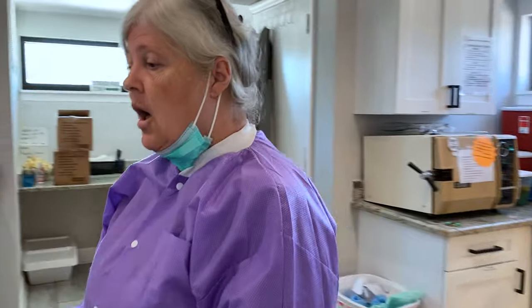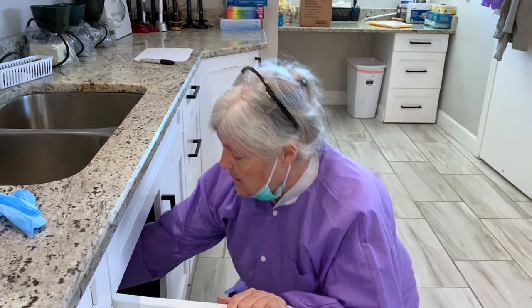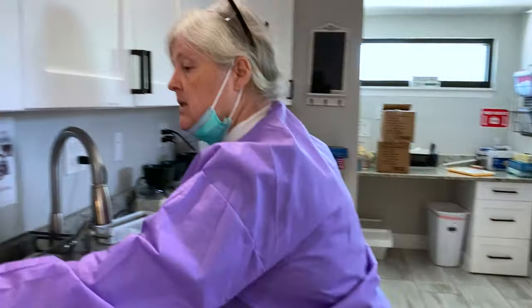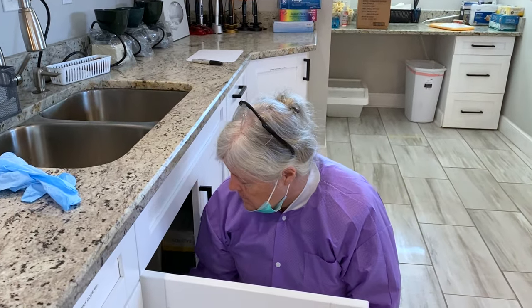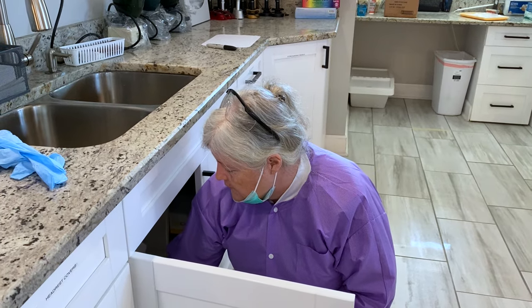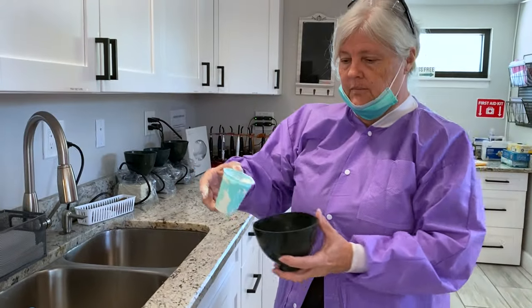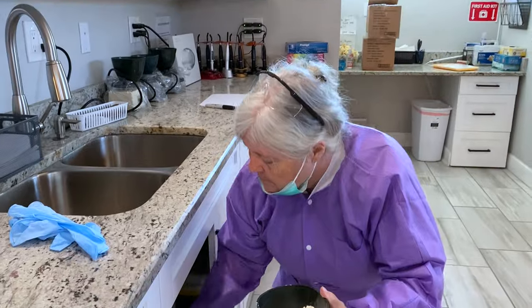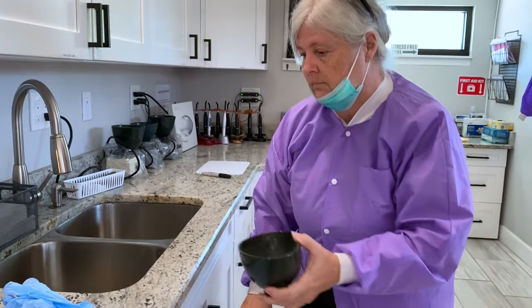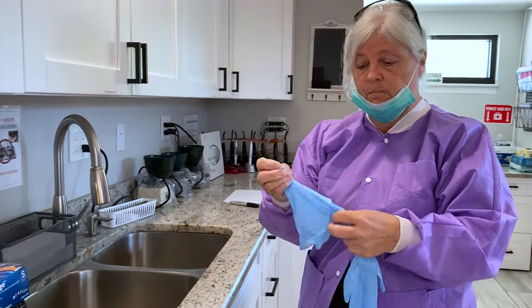Get your stone, and you always want to make sure you go into the stone with no gloves on. Get a mixing bowl and use one cup of stone for each model. Then you can put on your gloves.